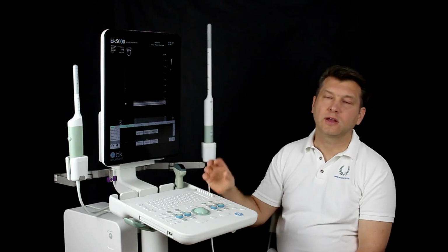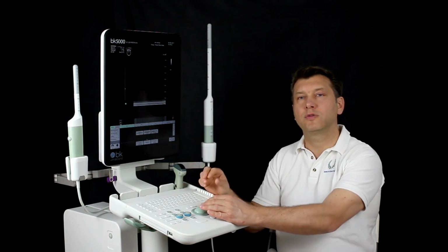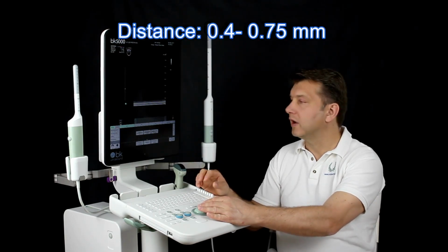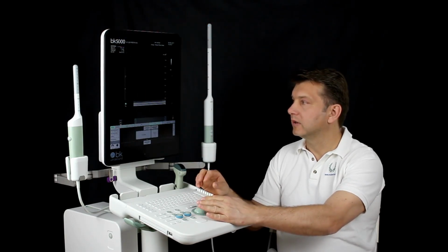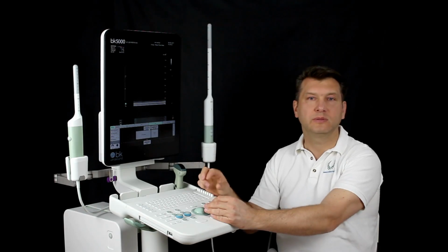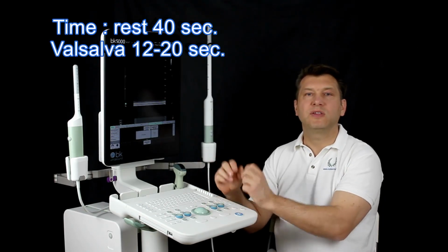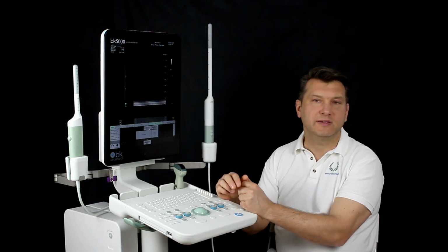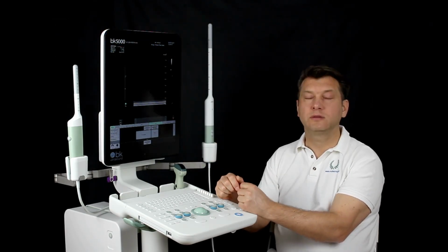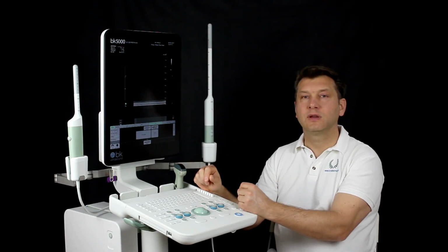Resolution stays in the standard setting. Distance or spacing: 0.4 until 0.75 millimeters. We go to the 3D card and put the spacing on 0.5. For example, time in rest around 40 seconds, with Valsalva 12 until 20 seconds. We go through each of these parameters to understand them.